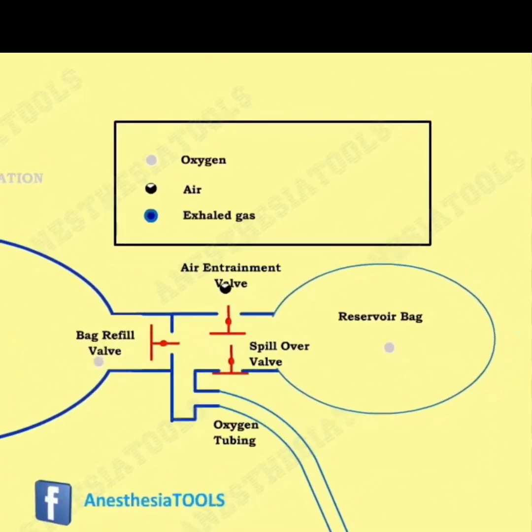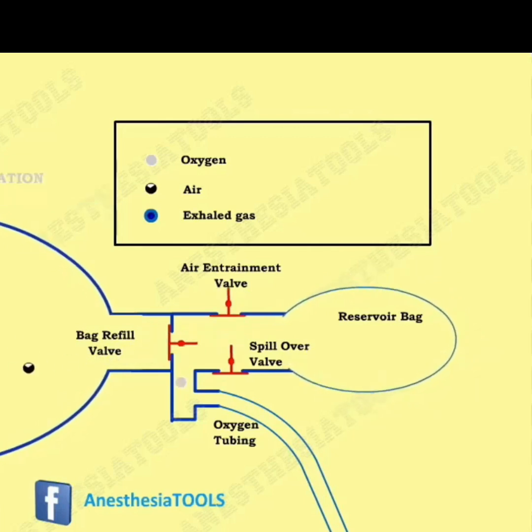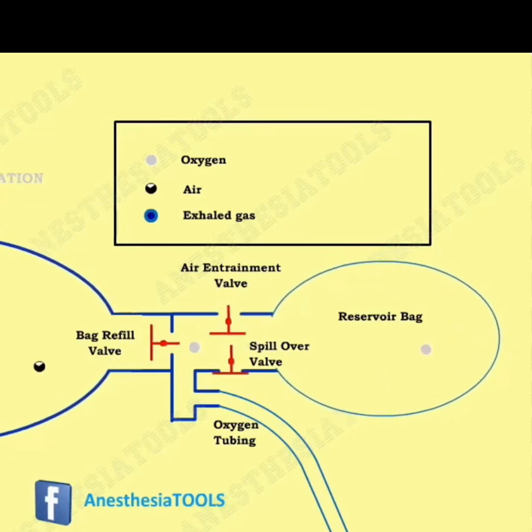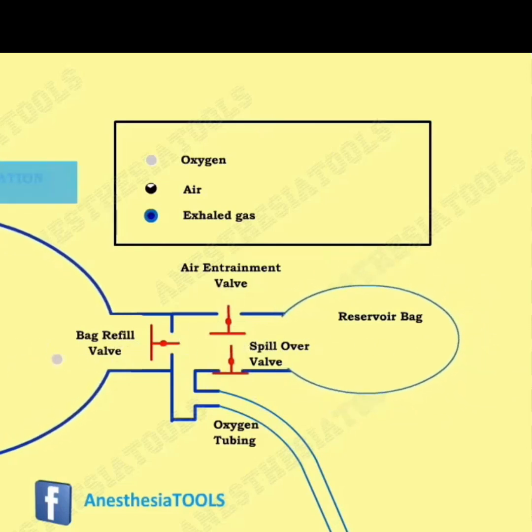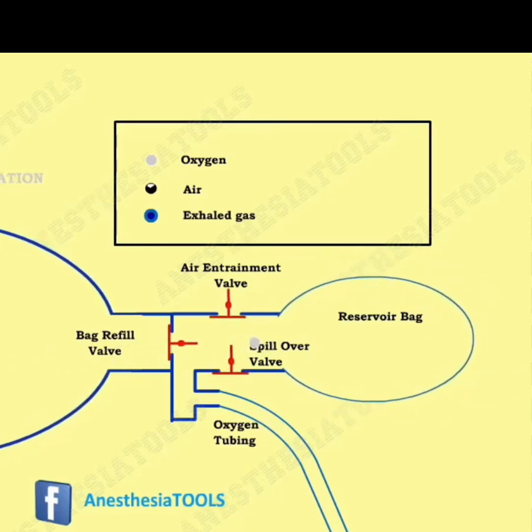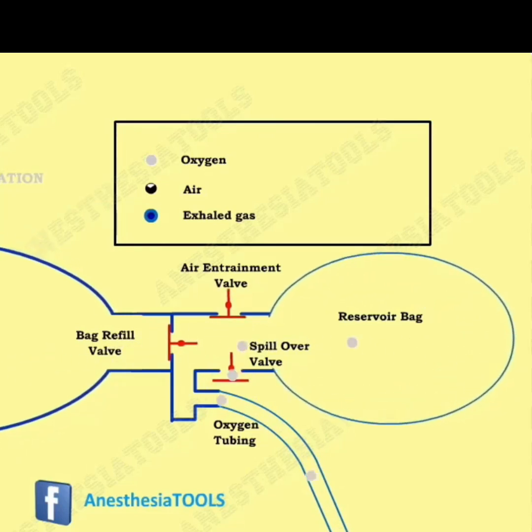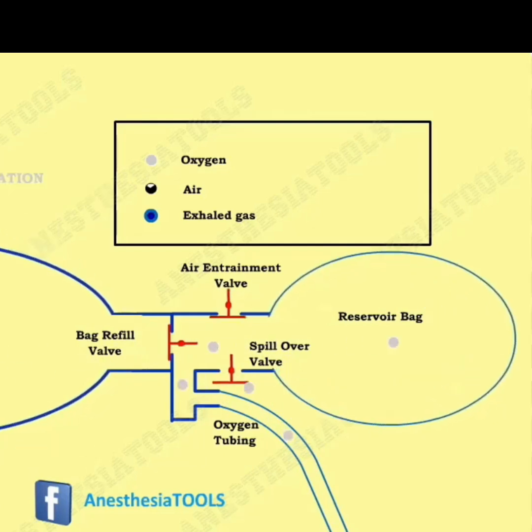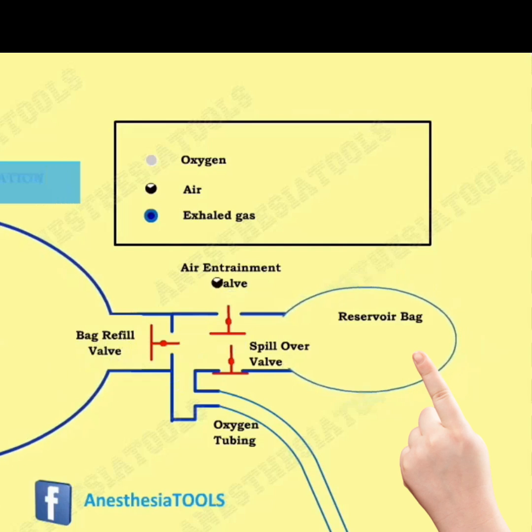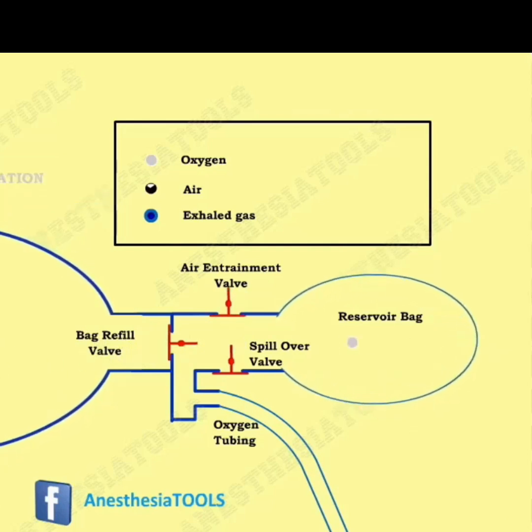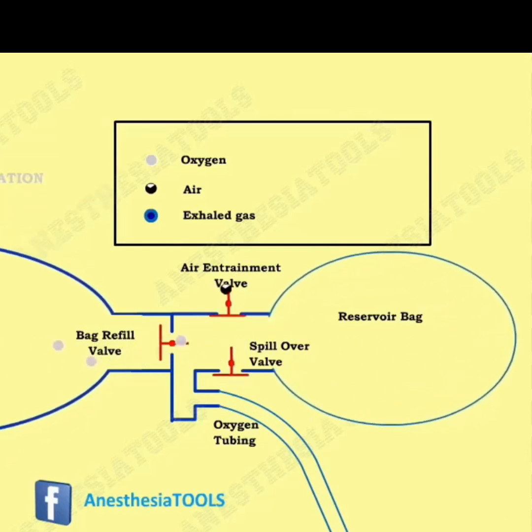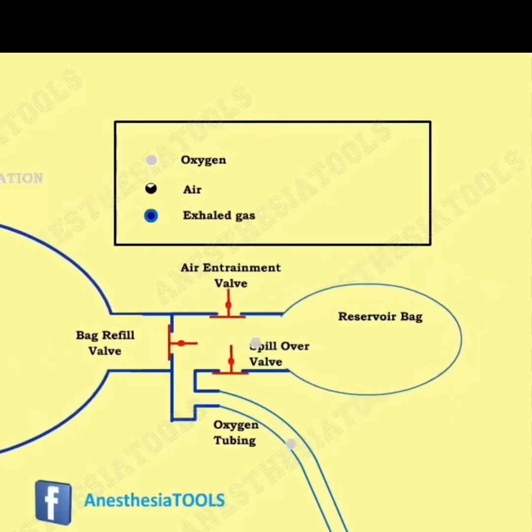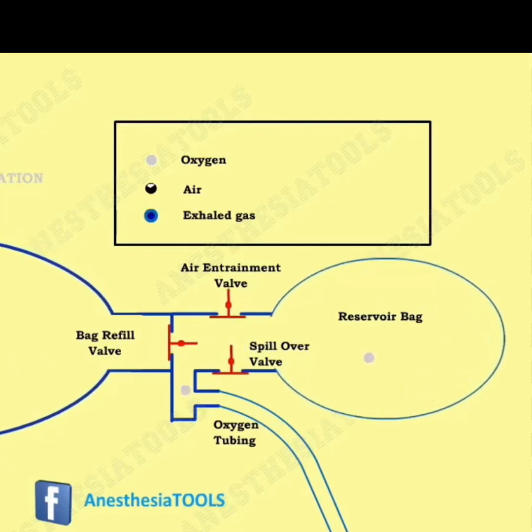At the other end, when the self-inflating bag is squeezed the bag refill valve closes, and when it re-expands the bag refill valve allows influx of air or oxygen mixture into the self-inflating bag. You can also note the reservoir bag emptying and refilling, and the other two valves — air entrainment valve and spillover valve — open and close as per requirement only.